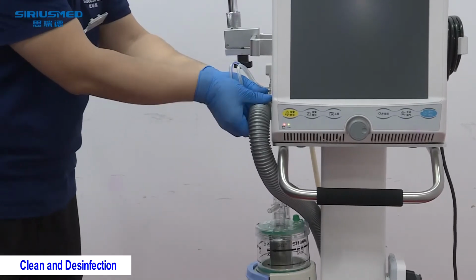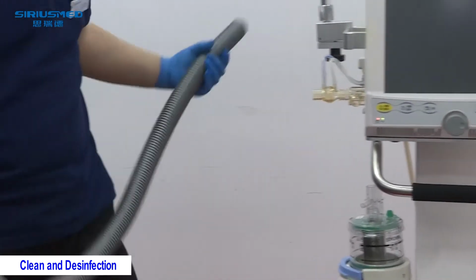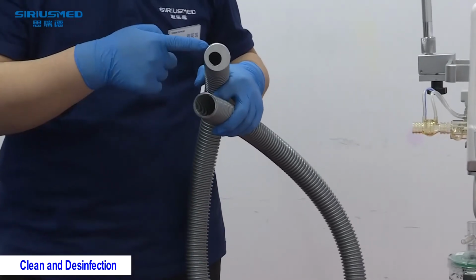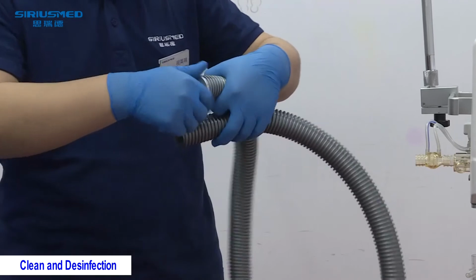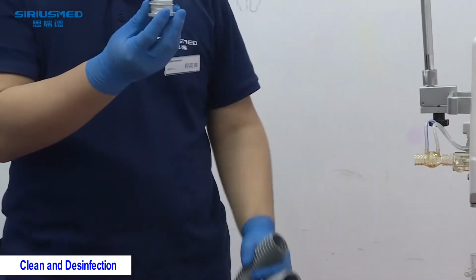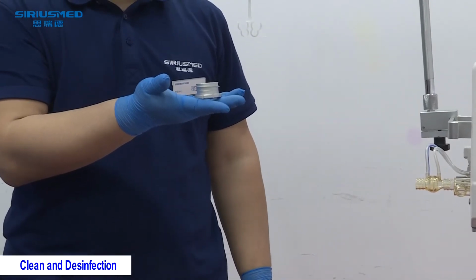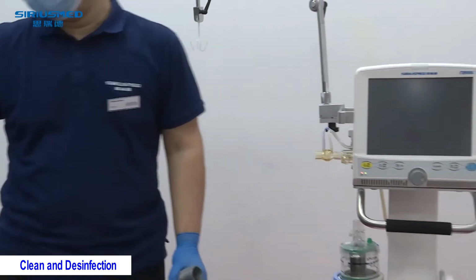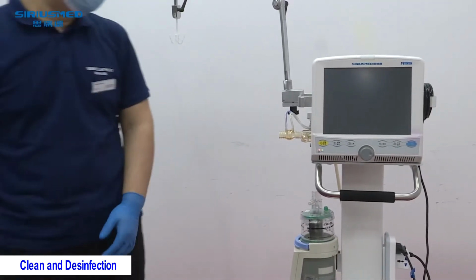Okay, the next disposable part is the exhaust hose. This hose contains two parts, the metal connector and the exhaust tube. The tube is disposable. We need to take off the connector by turning it clockwise. And this one we can use for different patients after disinfection.